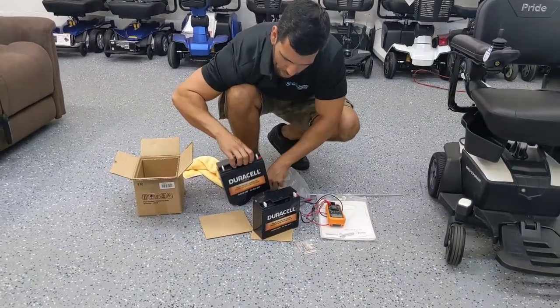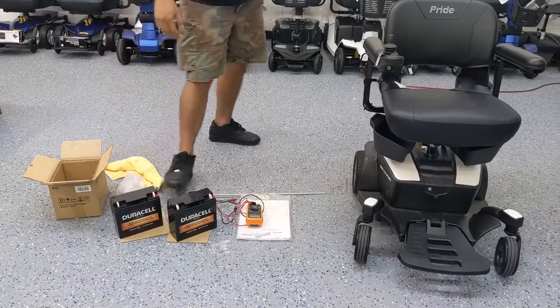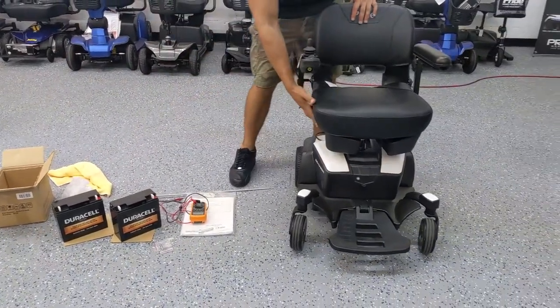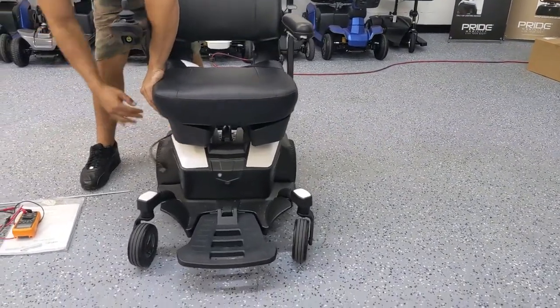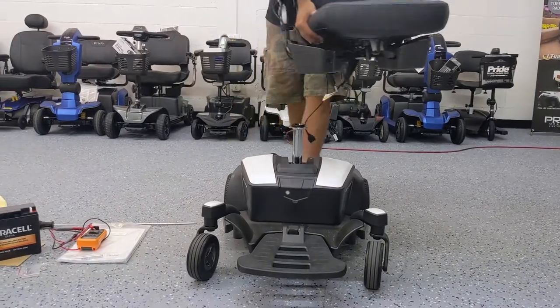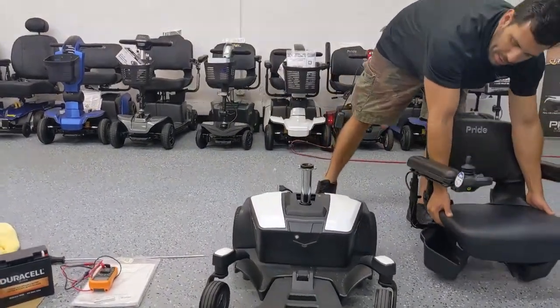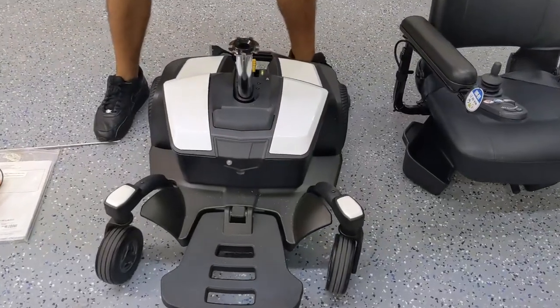If you're not sure what kind of batteries your scooter needs, you can always refer to our website, go to the product page, and simply go to the specifications section to find the battery type. Most power wheelchairs work off of sealed lead acid batteries — two 12 volts, to be exact.